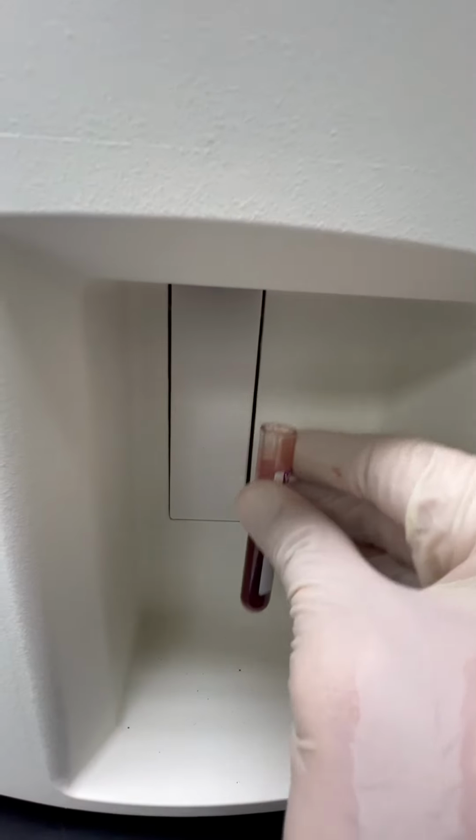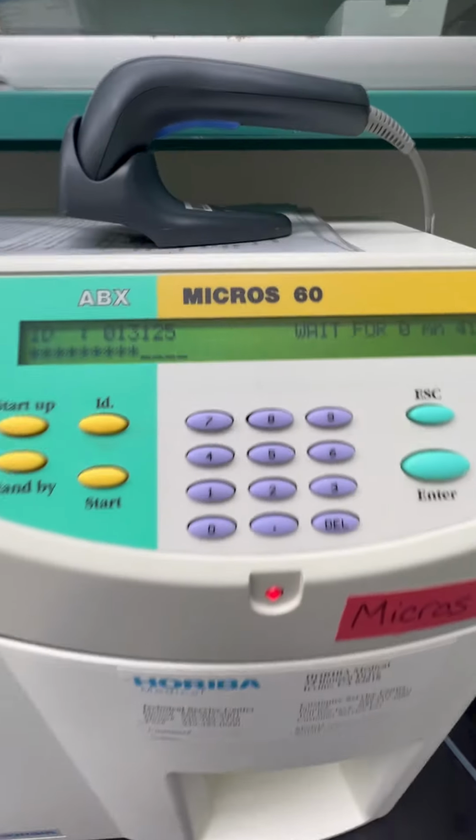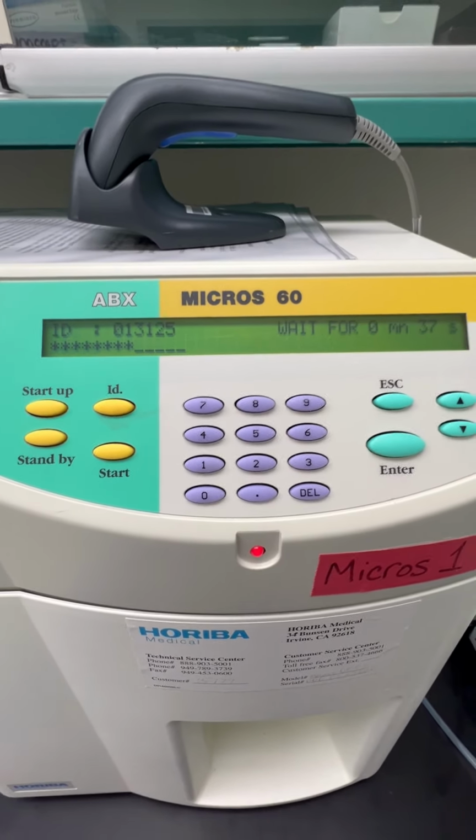Now I bring this up because you want to be very careful when you're applying the patient sample to the aspiration needle. You want to make sure that you're going straight down the middle of the tube, and you want to be sure not to accidentally bend the probe itself. So just a slight difference, nothing too difficult, just something to be cognizant of.